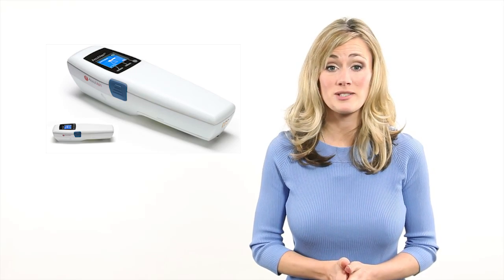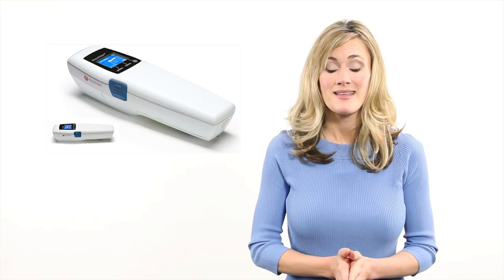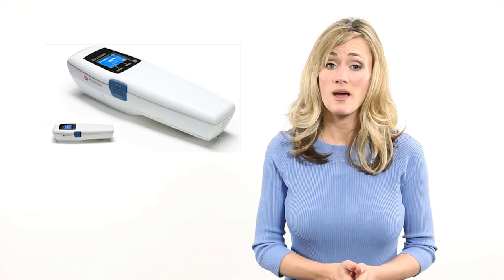There is a new small portable device that locates veins. This non-invasive method reduces the common problem of a nurse sticking you multiple times before finding the vein, and the problem of me smacking that same nurse open-handed to her face.